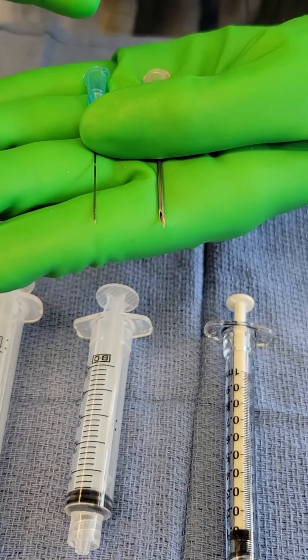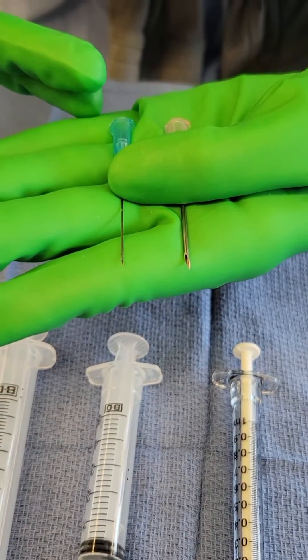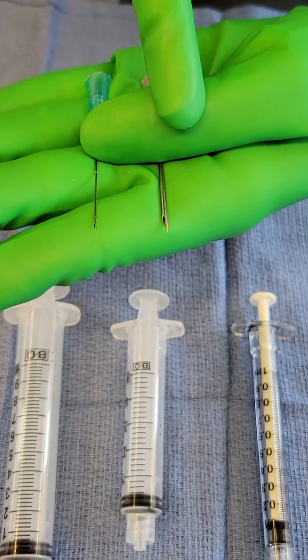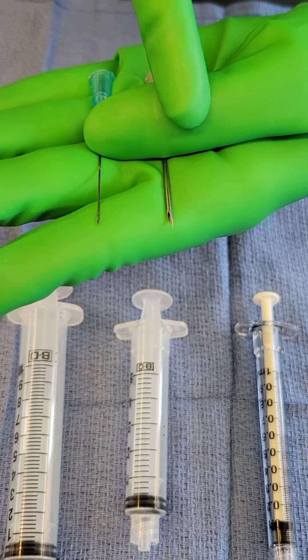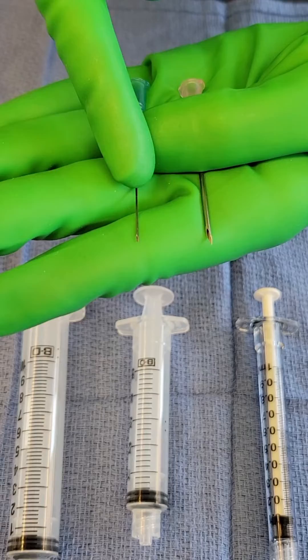As we've mentioned previously, when we are injecting we want to be as delicate as possible with the tissue. This 18 gauge is seldom an appropriate choice for injecting, whereas it's a good option for drawing up medication. In contrast, this 25 gauge would be appropriate to inject.